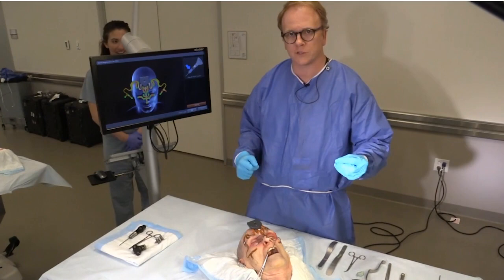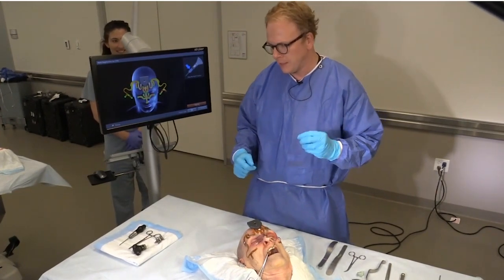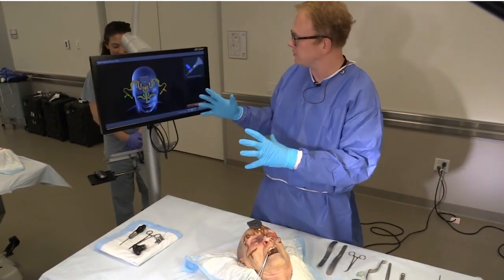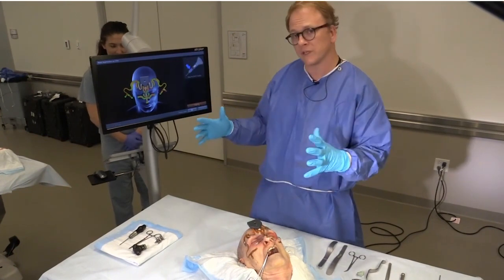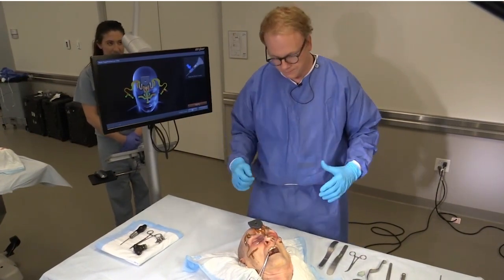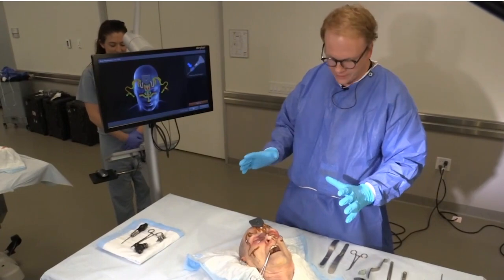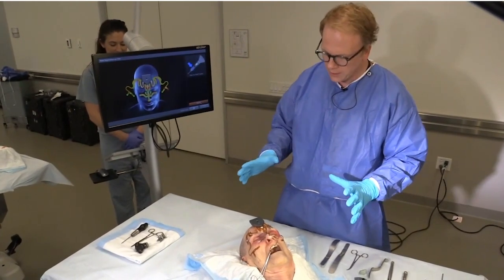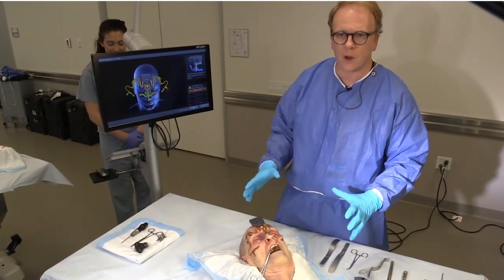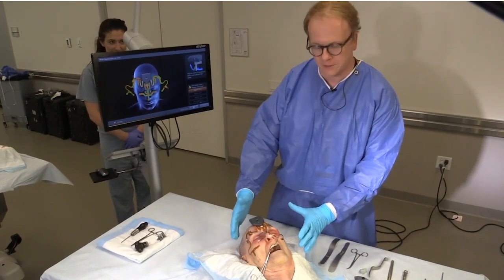The first two terms are registration and tracking, and those are really important for you to understand the setup for this whole system, which is really simple once you get past that. The first thing that makes this the easiest way to use navigation in the operative setting is using this thing here called the mask.